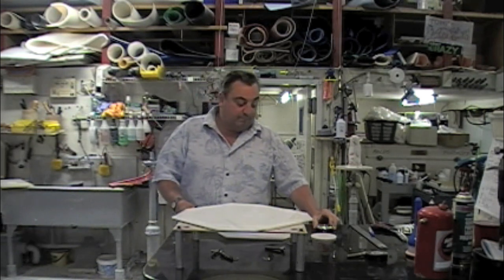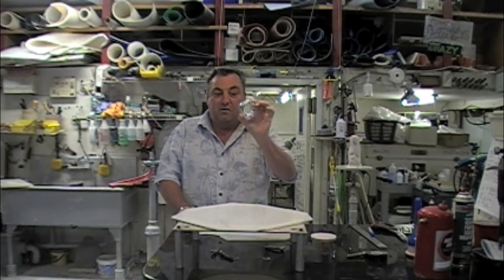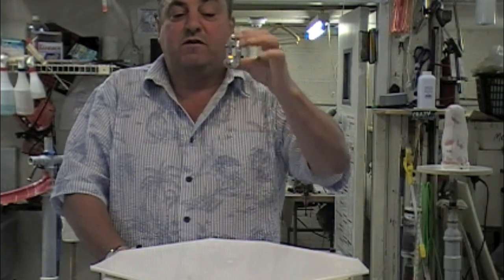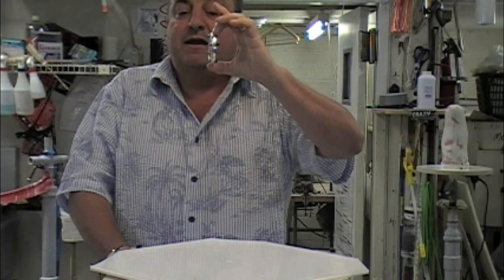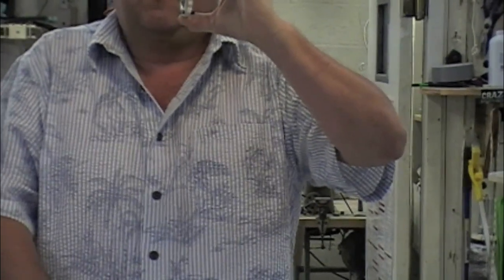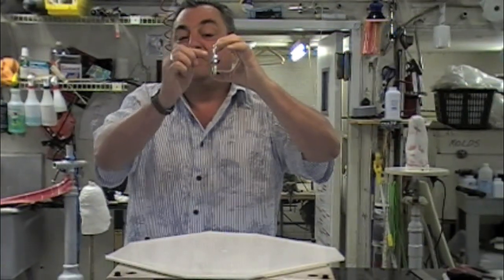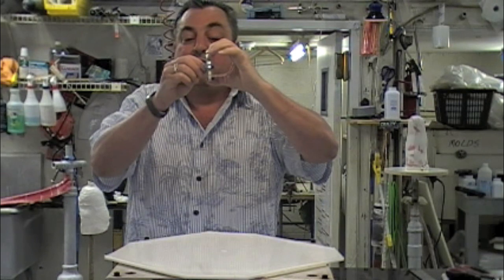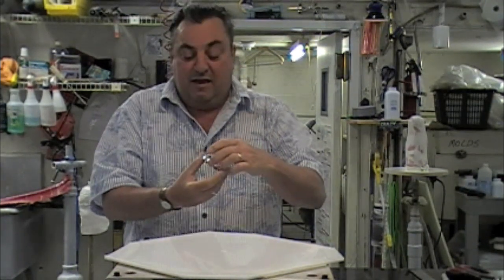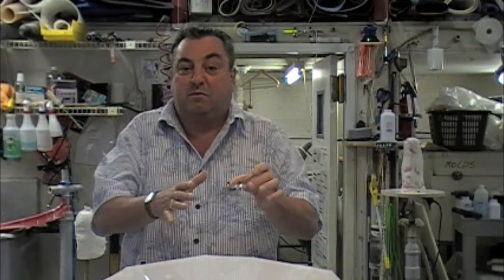So it's all a layup. You've got one piece with a hole first. The next part is the plate — we like this one because it's got a large ring in the center which allows air to evacuate out. It's got screws already in it, and those are going to create the channels for the screws that will assemble the pyramid afterwards. The heads of the screws have been ground off so you have just enough room for the Allen wrench to fit inside. The screws are set in a little bit deep because they're actually going to pinch the plastic as it heats, and that gap allows air to evacuate between the two pieces of plastic when it gets hot.